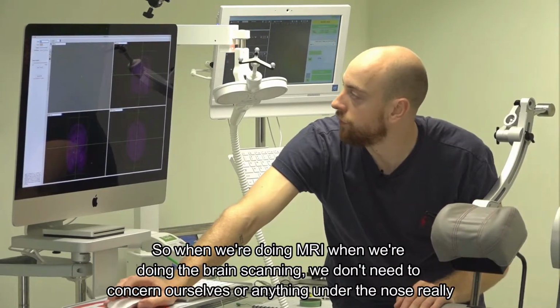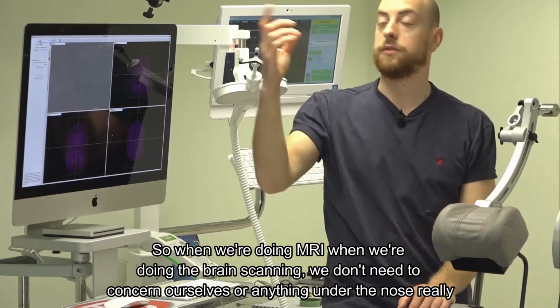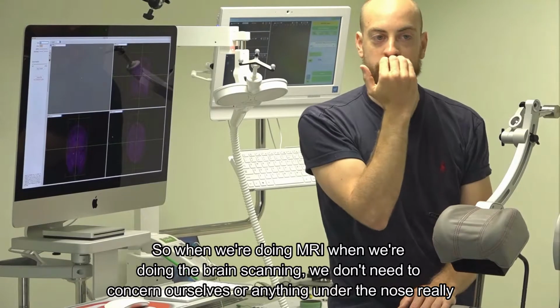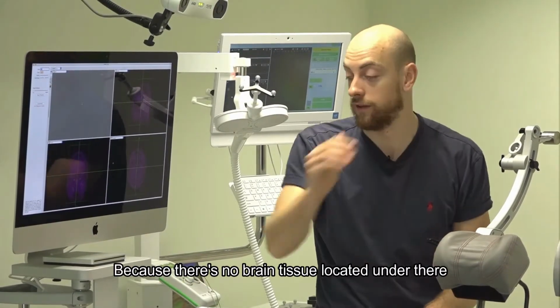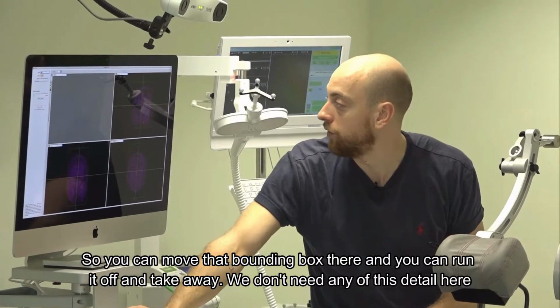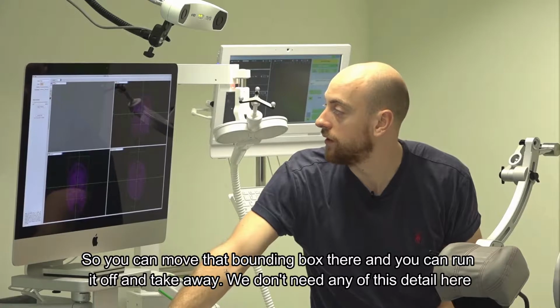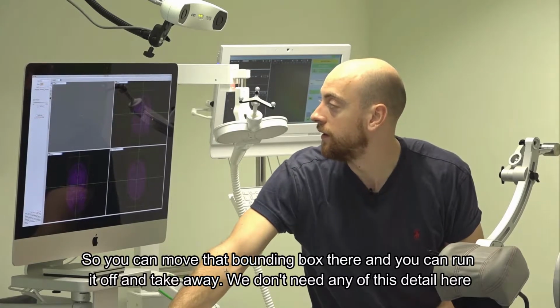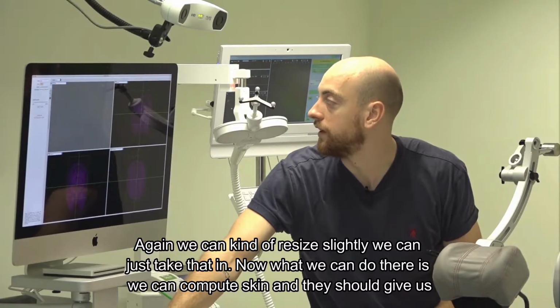When we're doing MRI, when we're doing the brain scanning, we don't need to concern ourselves with anything under the nose, really, because there's no brain tissue located under there. So you can move that bounding box there, and you can run it up and take away, we don't need any of this detail here. Again, we can resize slightly. We can just take that in.